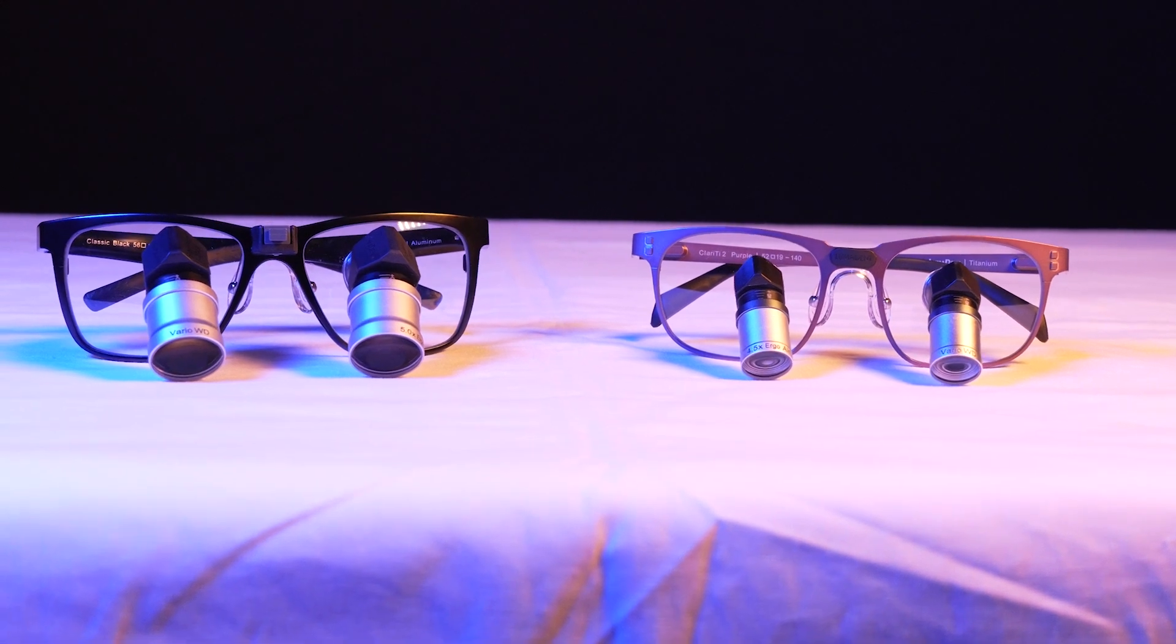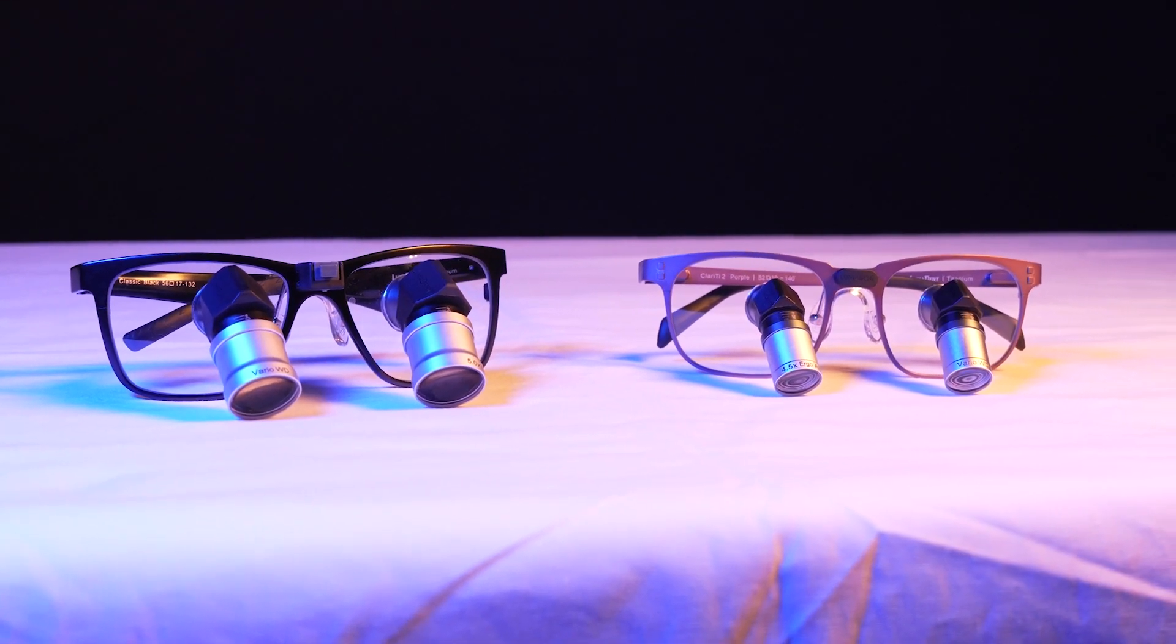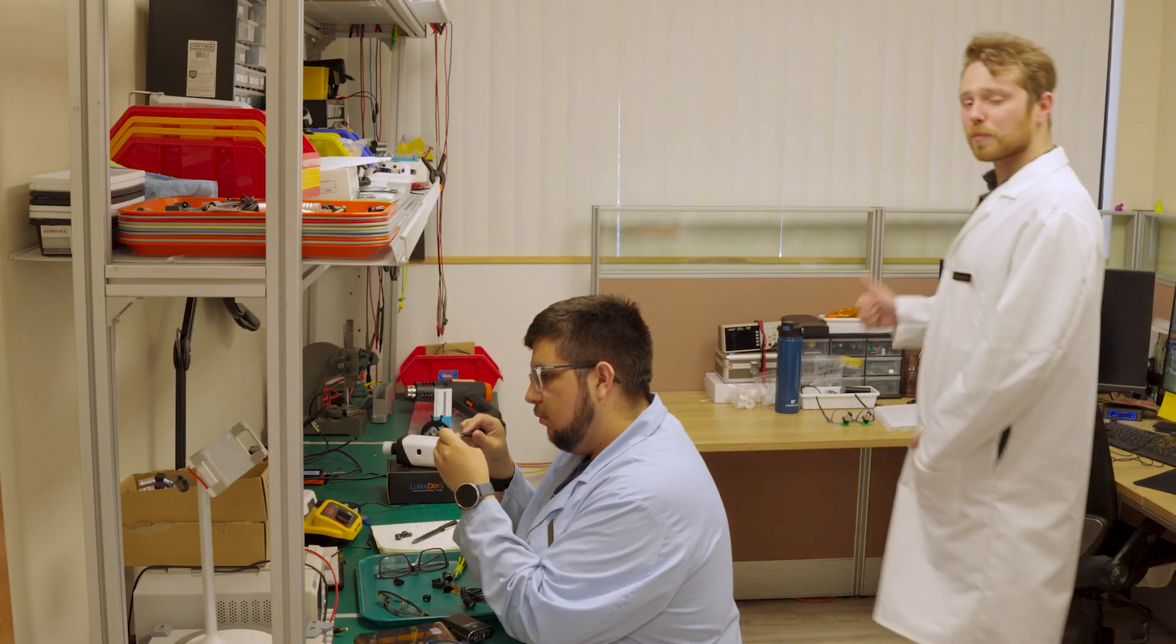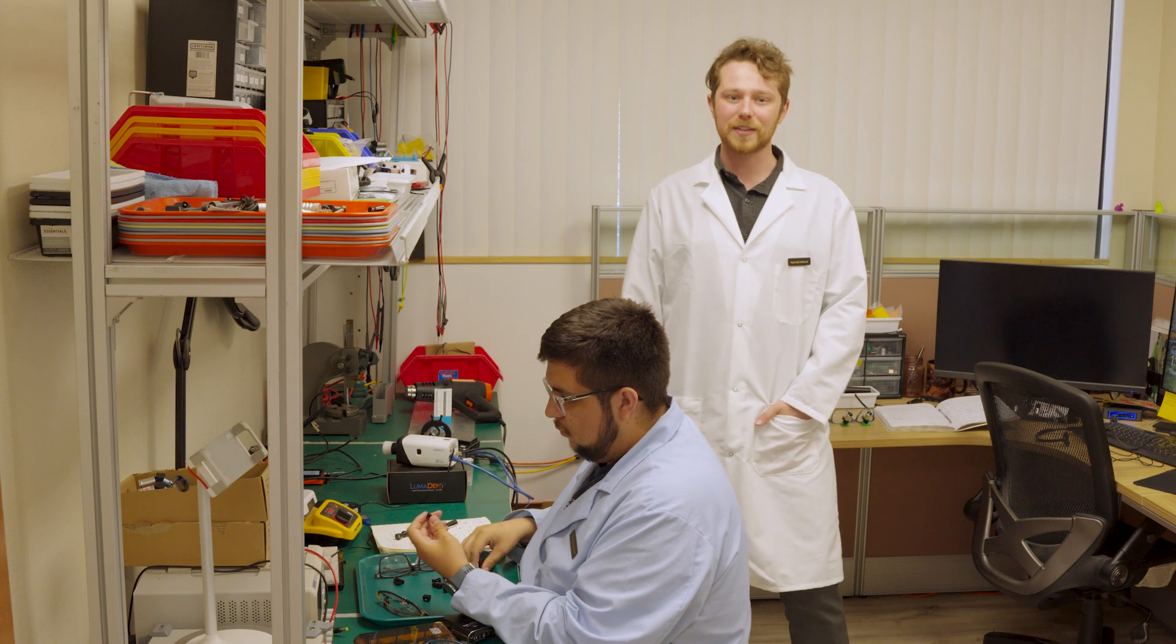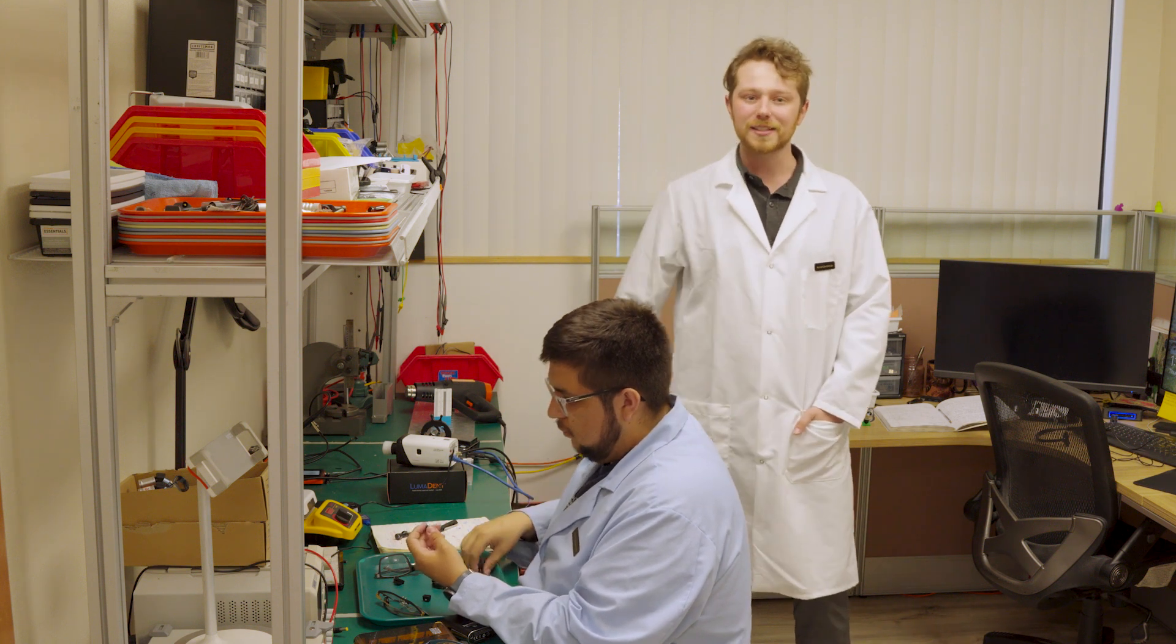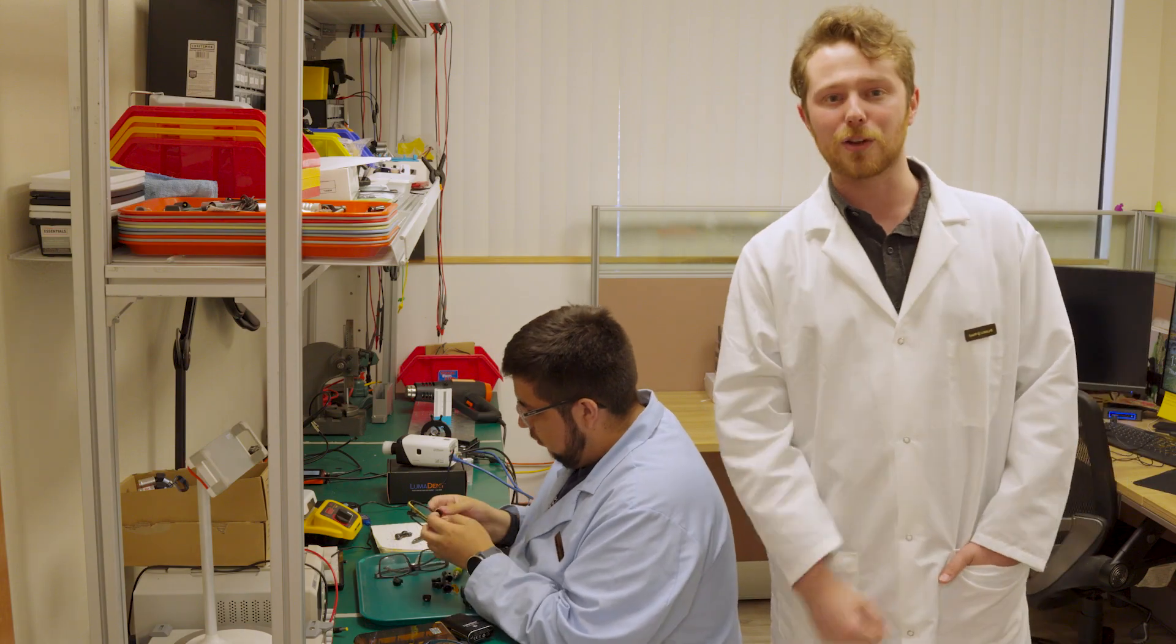Since then, we've introduced two more new iterations of Ergo Prism loupes, each with their own unique strengths. And that's why smart, dedicated, and incredibly handsome engineers such as Kevin and myself are constantly at work upgrading existing products and developing new ones.